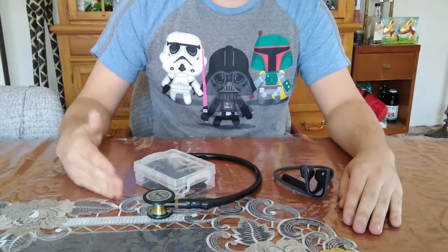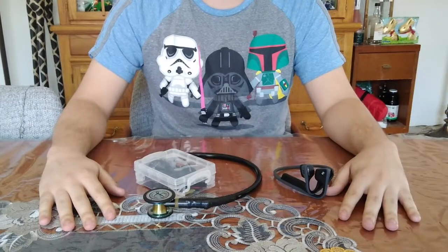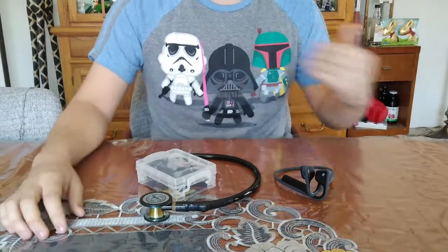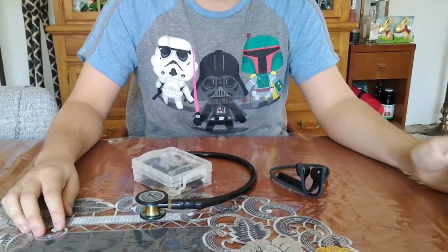This is the Wireless Bone Conduction Stethoscope by Stephen Bausch and Arman Latifi. The traditional stethoscope is used for auscultation, or hearing the body sounds, in a non-invasive way to understand a person's health.